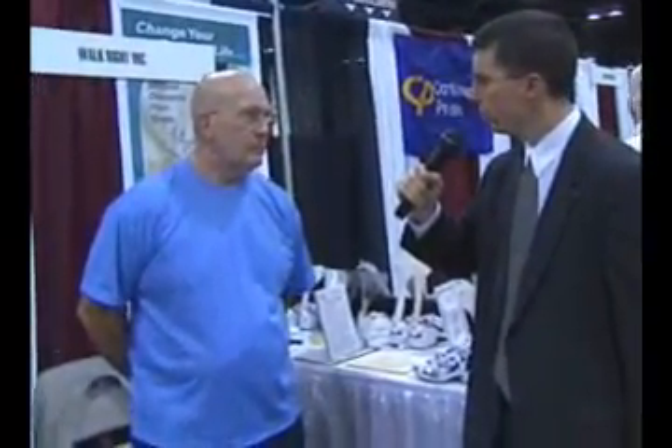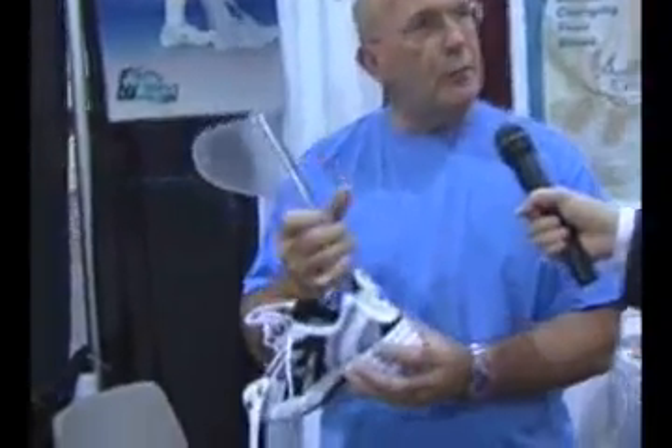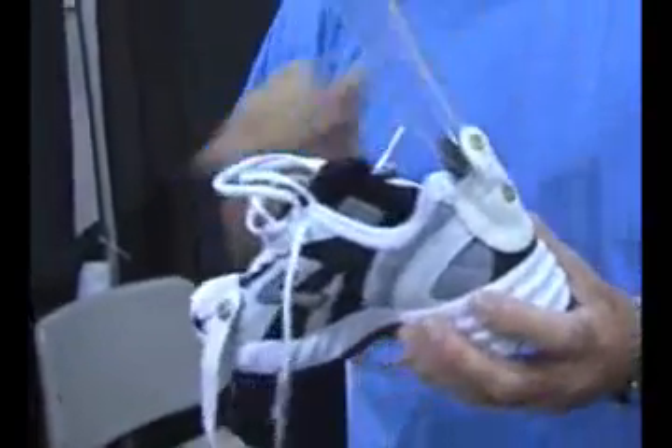Is this a solution that's one-size-fits-all? Can it accommodate children or adults? The brace itself can be adapted to any tie shoe or Velcro shoe, as long as it's a good sturdy shoe — a tennis shoe or a leather dress shoe. We have children in them that are 8 years old, up to adults 92 years old. The brace can be adapted to any shoe; all we do is sew the heel adapter on. They just unscrew one screw and the brace is interchangeable with all those different shoes. They don't need to buy four braces or four pairs of shoes — just one, adaptable to all.